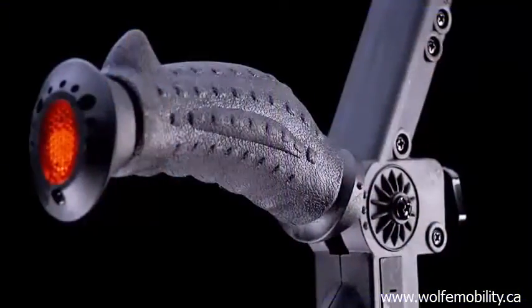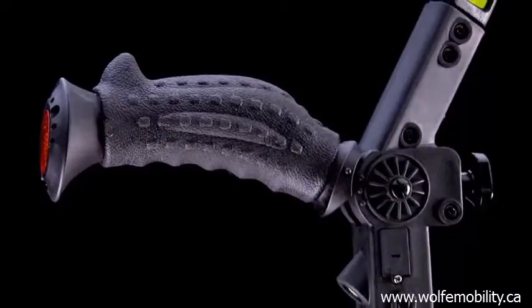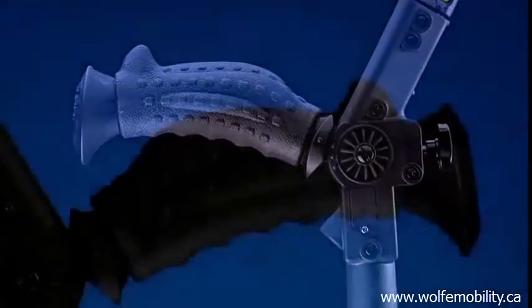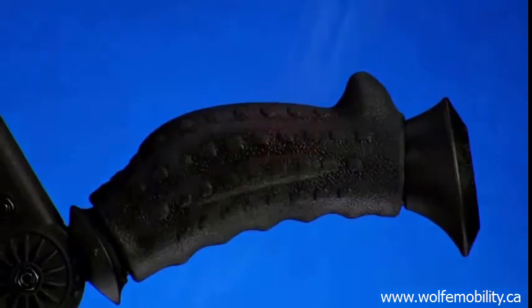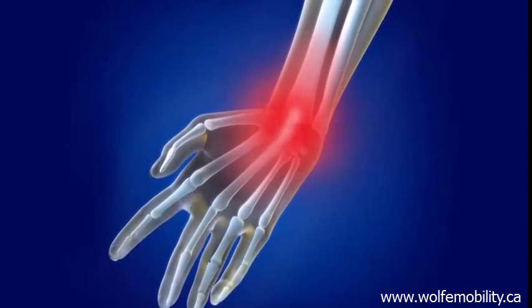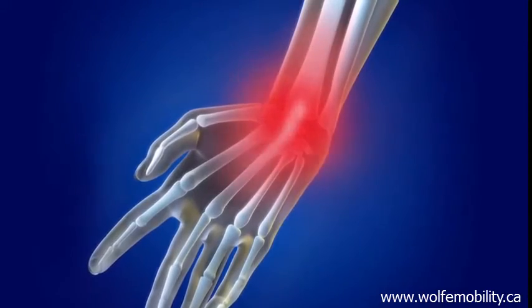Another essential piece of this equipment is its handle, which contributes to the third anti-impact mechanism. An internal steel strip eliminates the impact on the elbow, hand, and wrist structures, reducing or eliminating painful inflammation or injury such as that of the carpal tunnel syndrome.